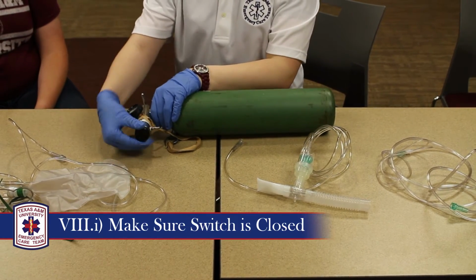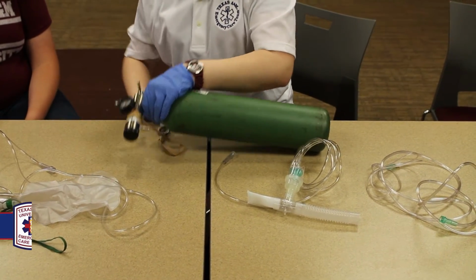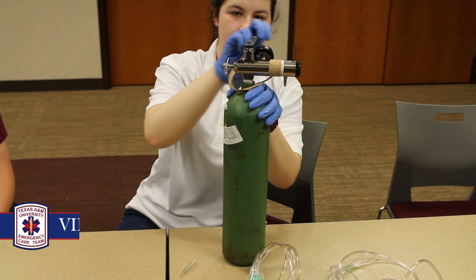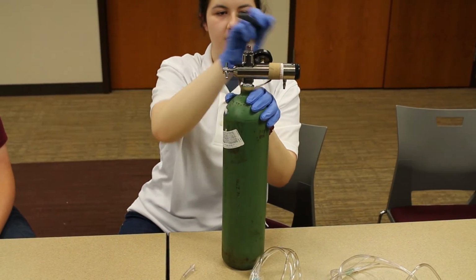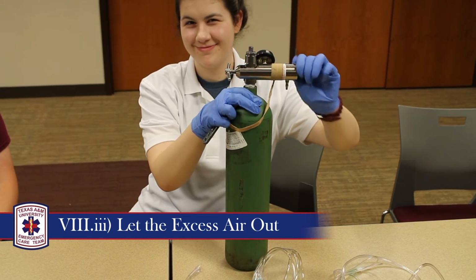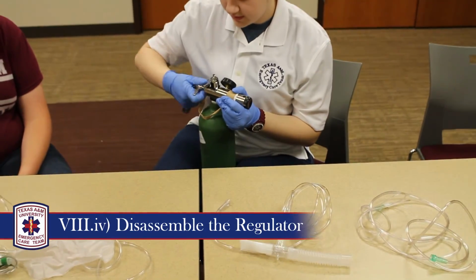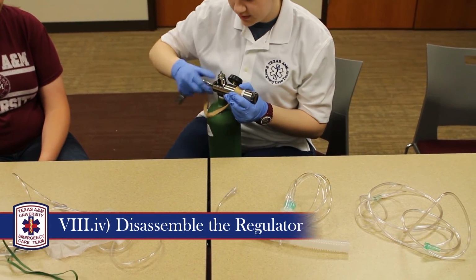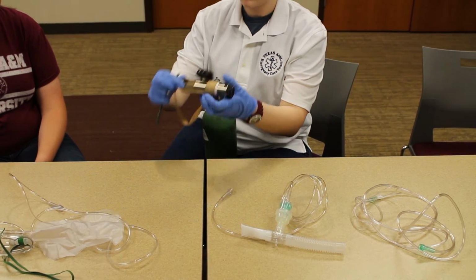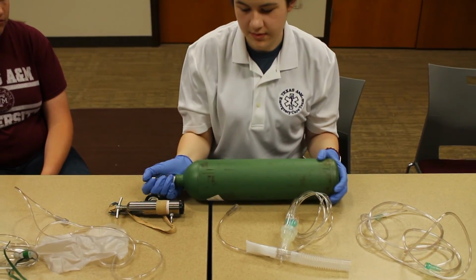To disassemble the device, make sure the switch is closed and use the wrench to close the valve. The regulator will have some air left over, so make sure to let the excess air out. Next, you can remove the regulator by unscrewing the screw and removing the two prongs from the holes. Make sure to always lay the tank down flat.